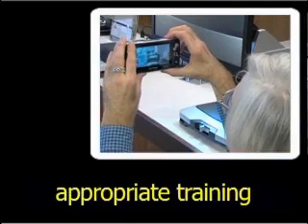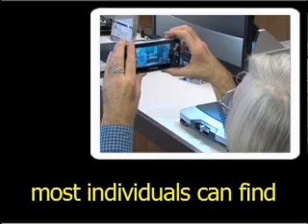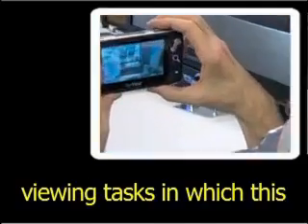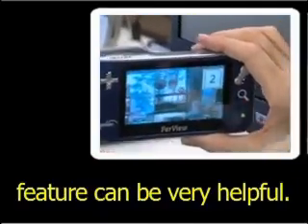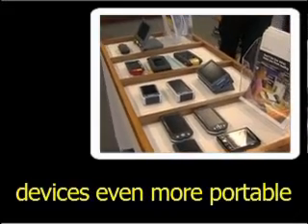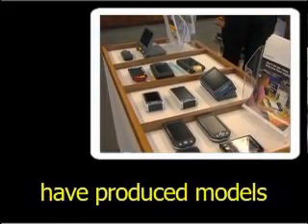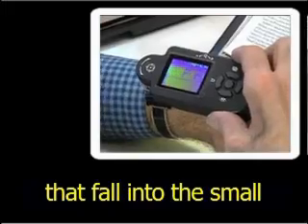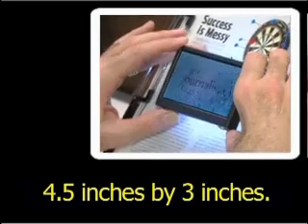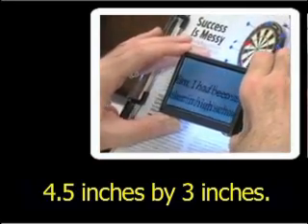But with patience and appropriate training, most individuals can find viewing tasks in which this feature can be very helpful. In an effort to make these devices even more portable, some manufacturers have produced models that fall into the small subcategory, measuring about 4.5 inches by 3 inches.